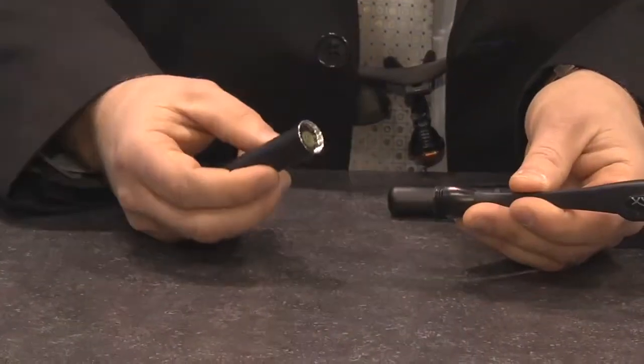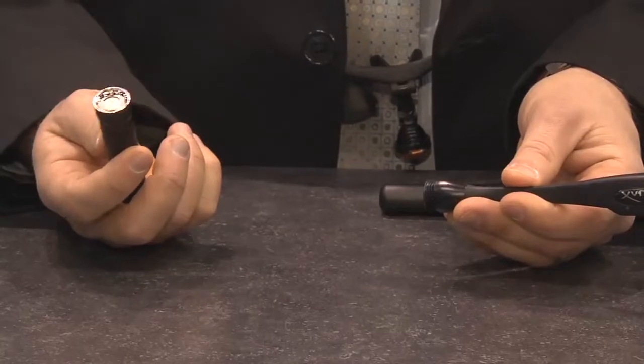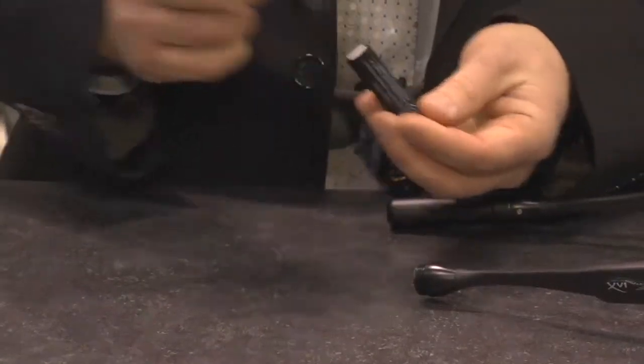After giving my evaluation, they asked if I could send them back. And I was like, are you crazy? This is the greatest thing I've put on my head in years. There are little screw-on, screw-off tubes in the back with rechargeable batteries. It makes it easy to wear — there's no cord to hook anywhere, you don't snag it, you don't have to worry about it. It's my go-to. I wear it every day for everything I do.